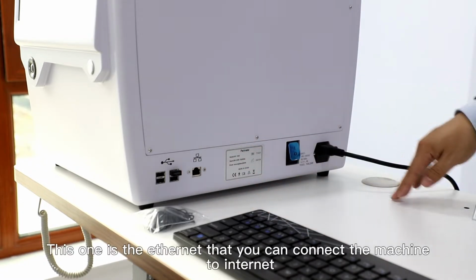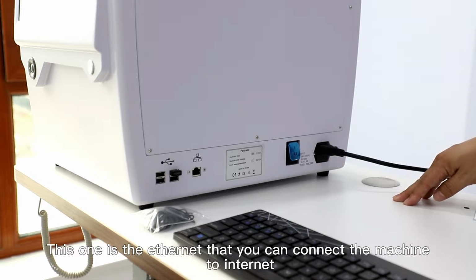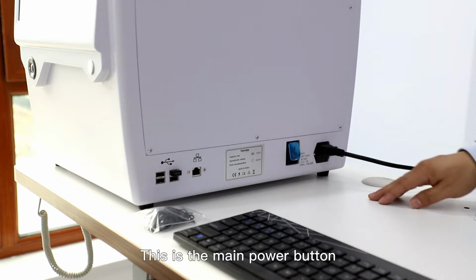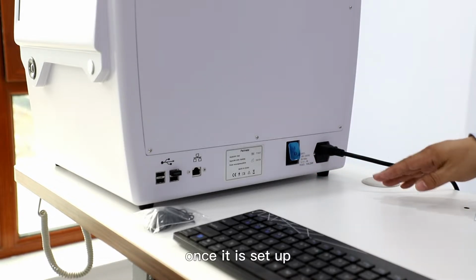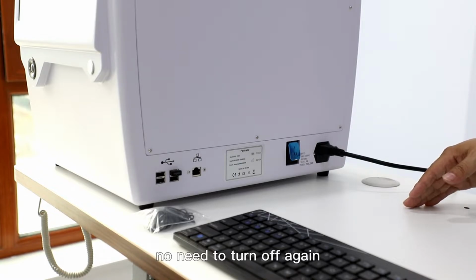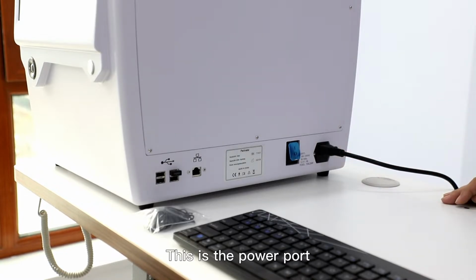This one is Ethernet, so you can connect the machine to the internet, and it's also reserved for DICOM compatibility. This is the main power button. Once it is set up, you just turn it on and leave it there. No need to turn it off again.